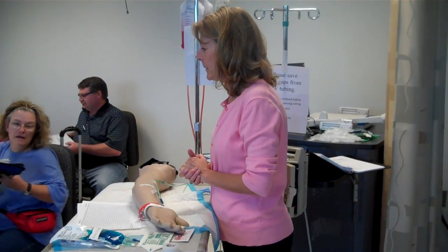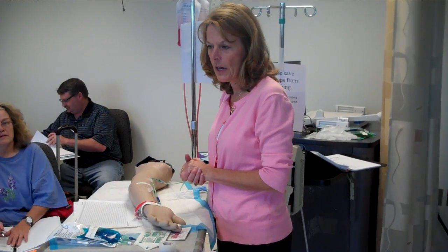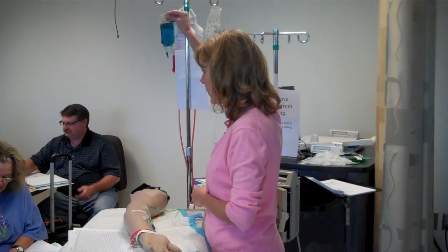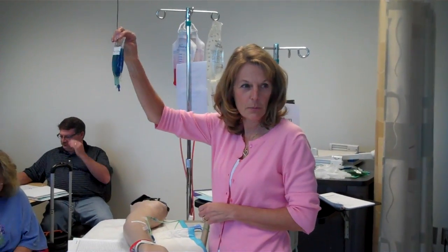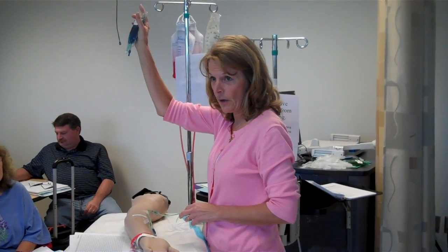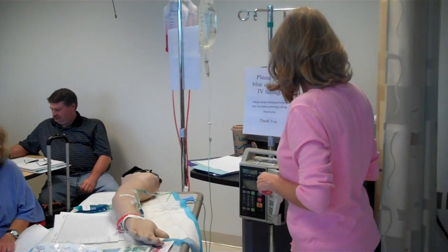Going through secondary, so hanging IV piggyback, and we are hanging the antibiotic. Alright, so just for class demo, we have a blue antibiotic. You probably don't ever see this. Really, you might see yellow antibiotic. That's kind of rare, but this one's blue just so you can see. Alright, when I prime. Alright, so page 99.